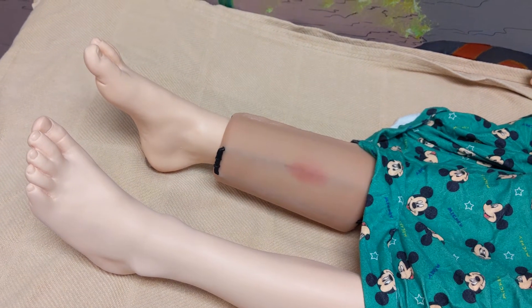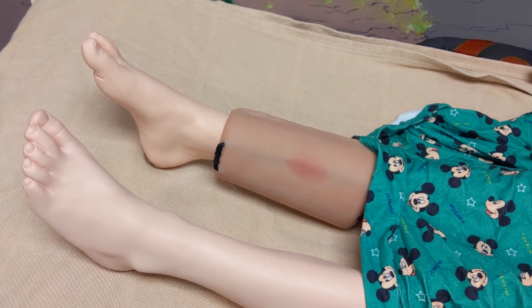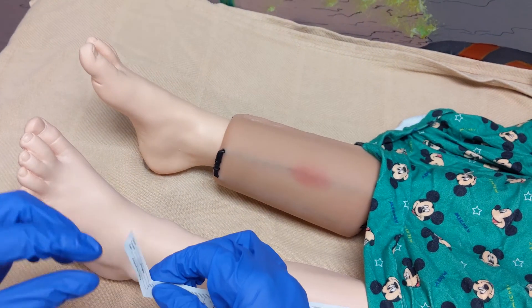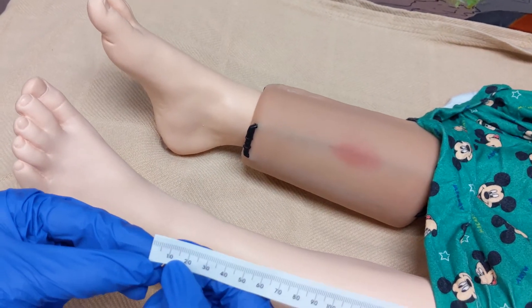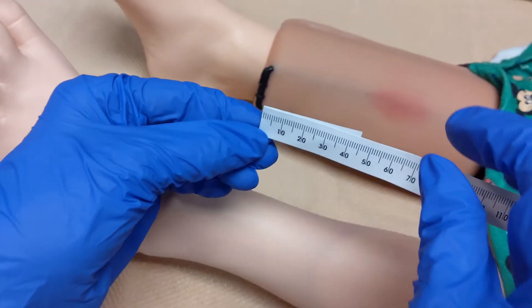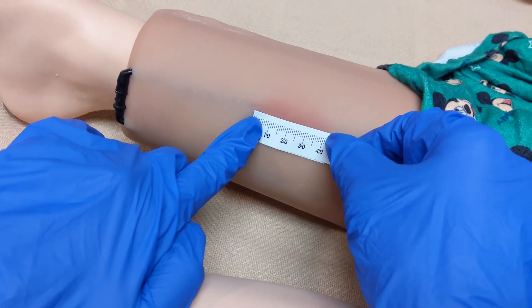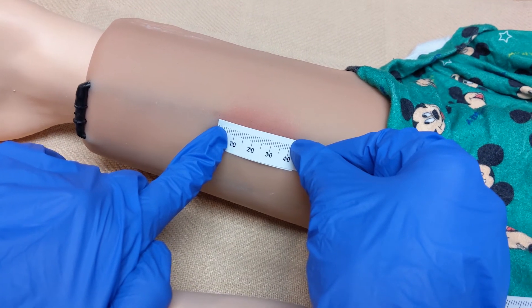After removing the IV, I'll take my tape measure and measure the fold so that I start at 0 cm. I'm going to measure the longest part of the infiltrate. This one measures 4 cm.